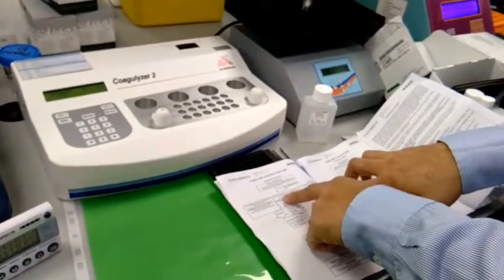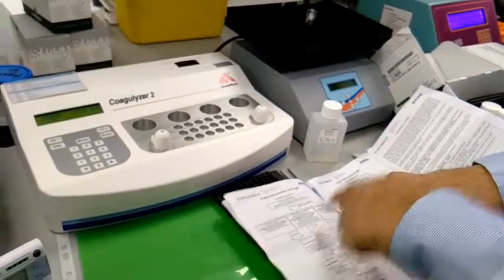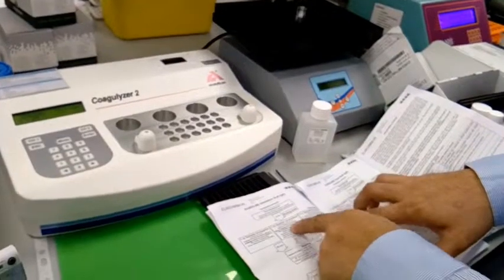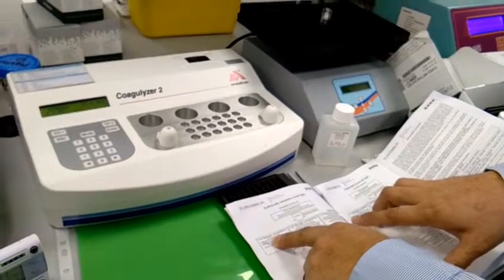If you will use the second option, letter B, you have to incubate primarily for 2 hours. It differs because there is a dilution here, whereas option A has no dilution. We will use sample A first — no dilution.